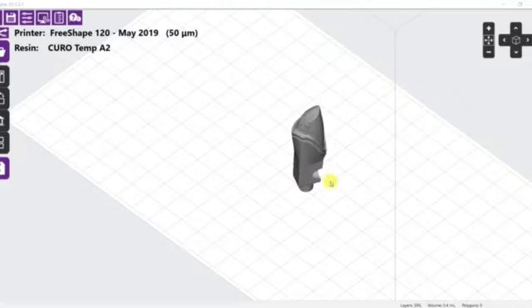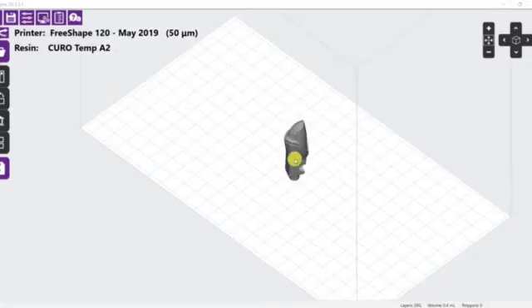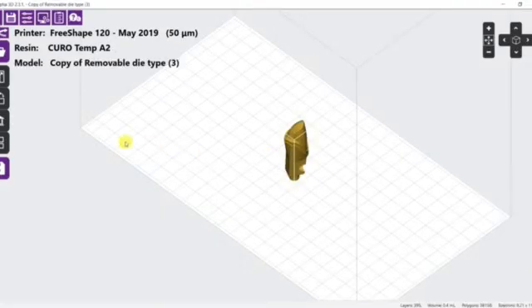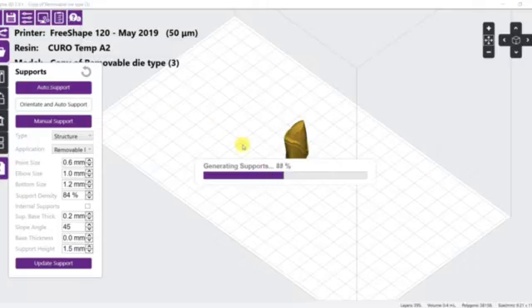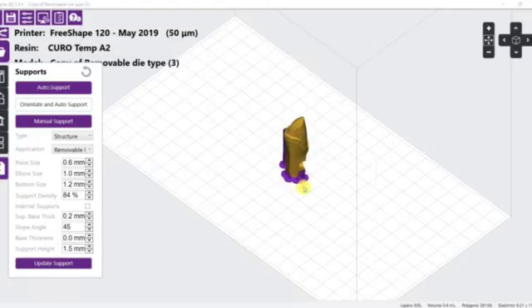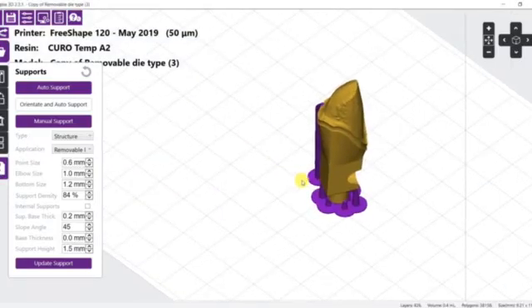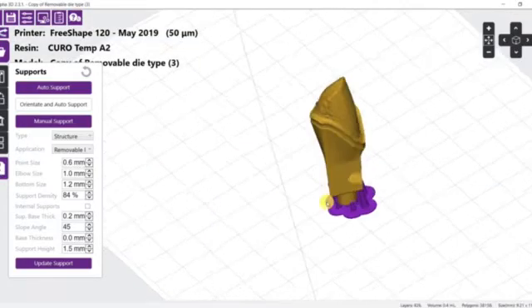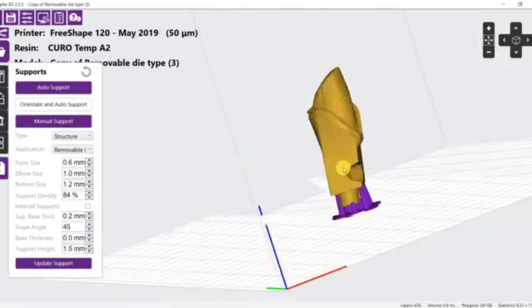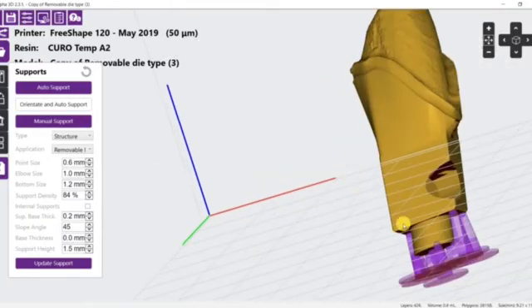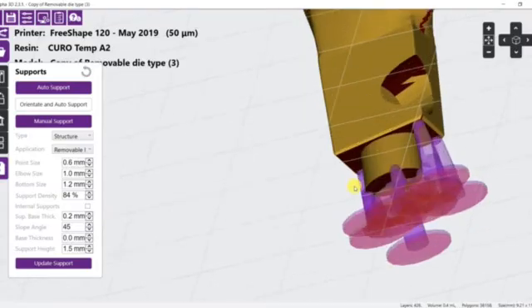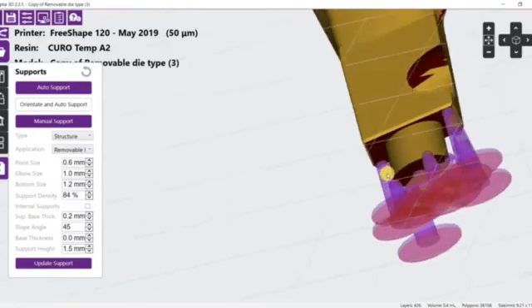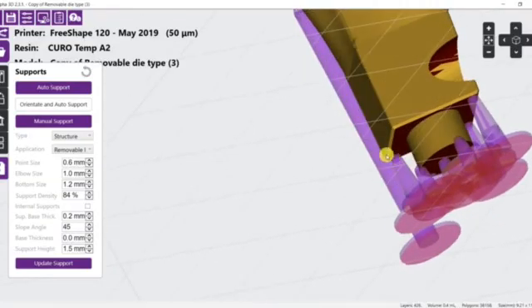Sometimes, we also need to remove unnecessary supports. There will always be a burr in any area where the support comes into contact with the part, and depending on the application, these burrs usually require some type of post-processing to make sure the finished piece is smooth and a good fit.